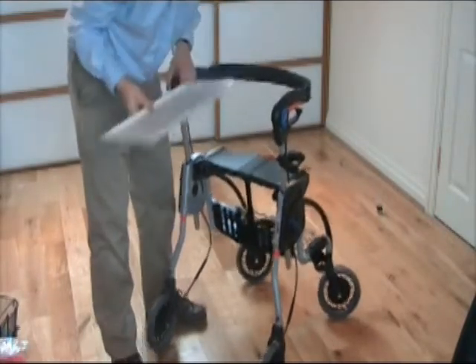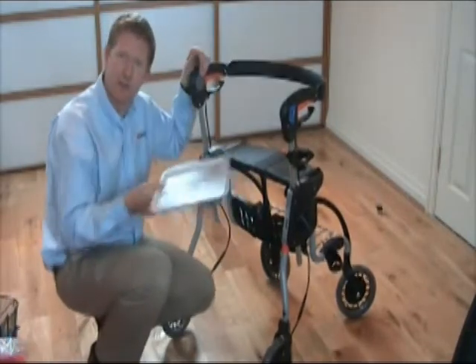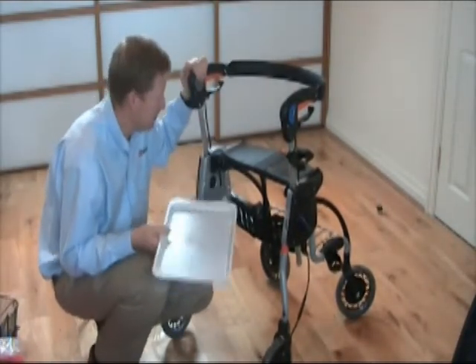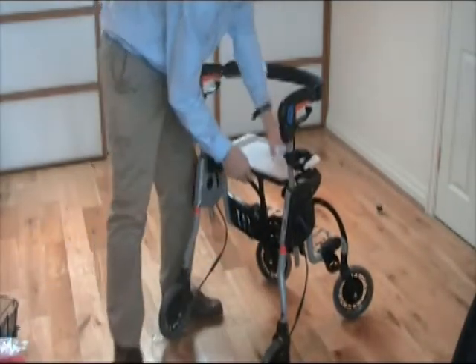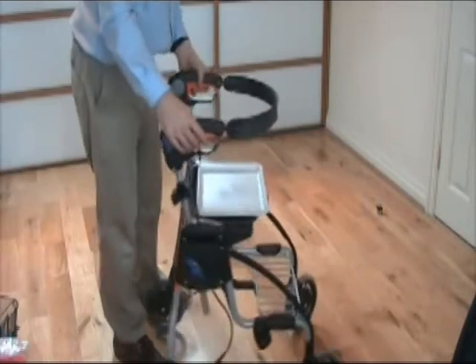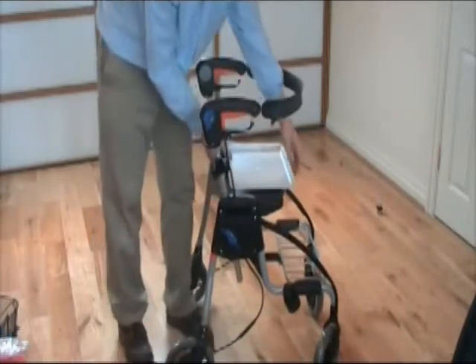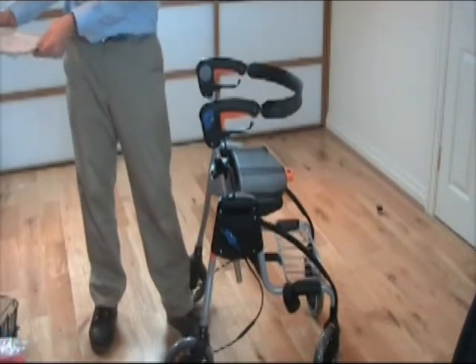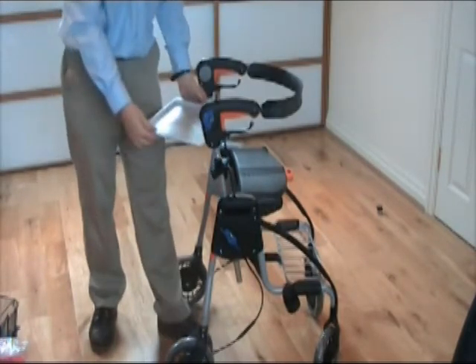The rubber stops are also useful when putting it on a slippery surface so that the tray doesn't slide across the table or whatever. You place the tray on like this and it keeps it quite firm. Then you can pick the tray up and take it to your table with your food on the tray.